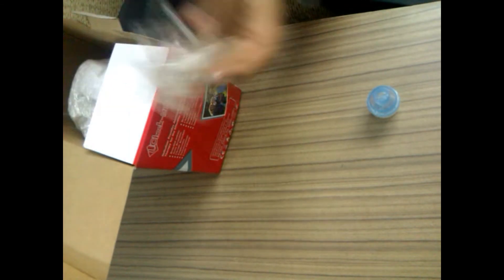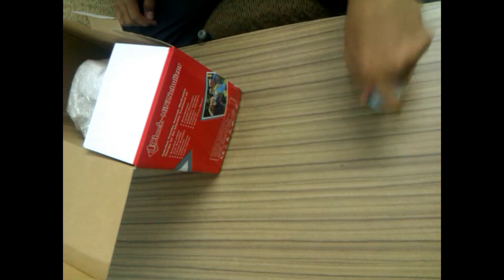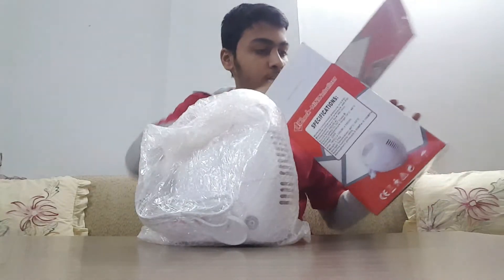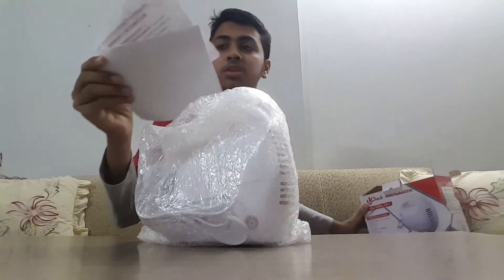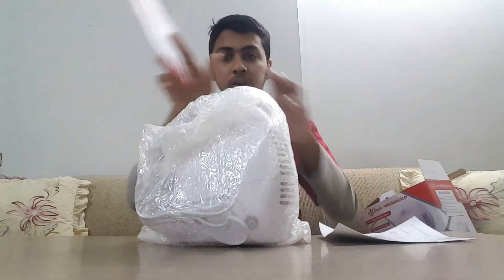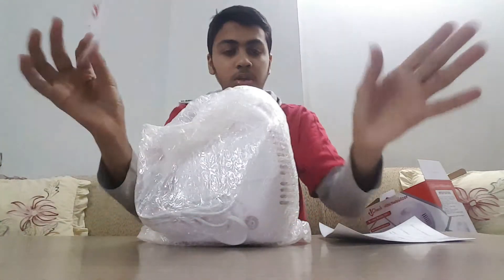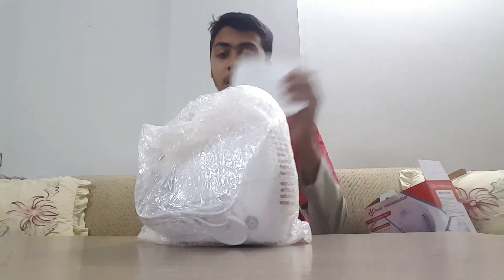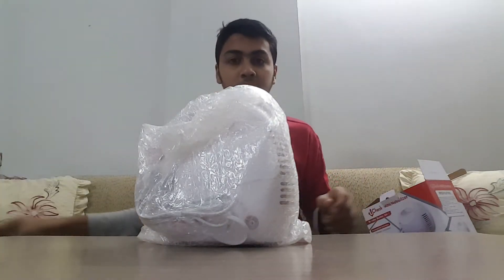This is the pipe which connects the mouthpiece to the main unit — the nebulizer itself. You also get the three-year warranty card and the standard user manual, which you have to read before using this.